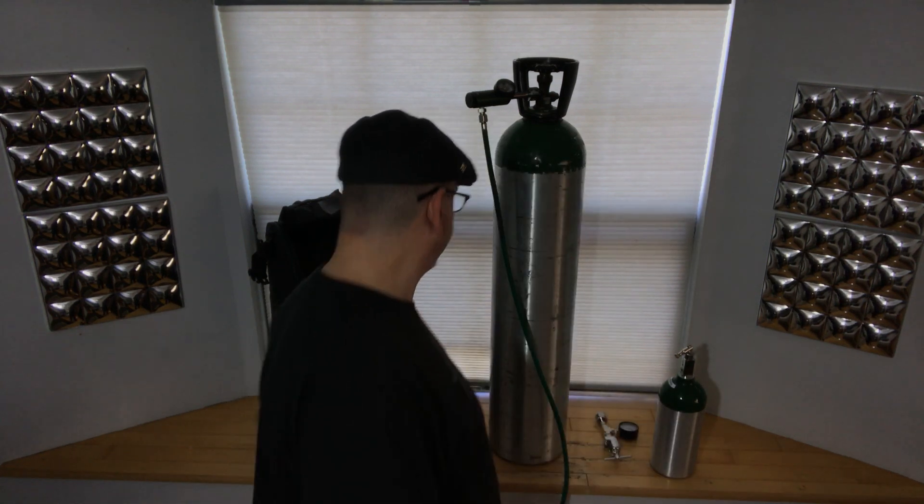You want to have absolutely no air left in your lungs. When you do that — exhale all that air — then you're going to take a full breath of oxygen. The difference between just breathing oxygen and mixing it with room air is you're not effectively changing your blood pH because you've still got carbon dioxide in your system. The idea is to get all that carbon dioxide out and replace it with oxygen.